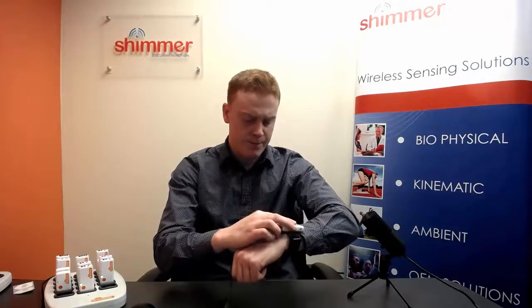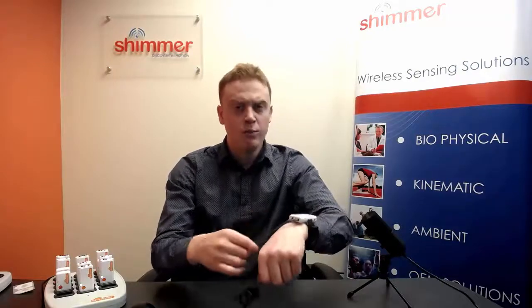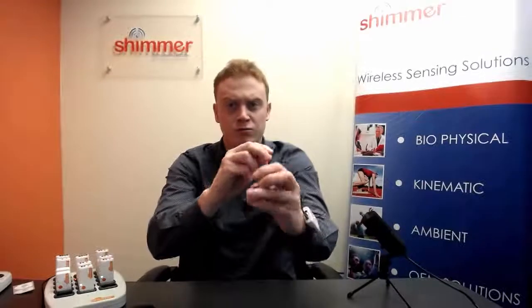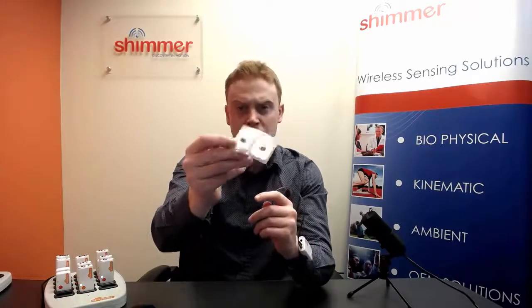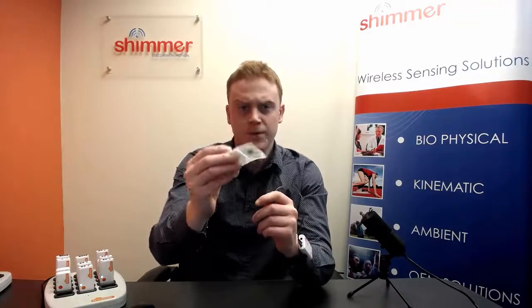With our system, the unit is typically placed on the wrist with biophysical leads connecting the unit to the two GSR electrodes. GSR dry electrodes come standard with our kits, but compatible gel electrodes such as these can be purchased separately on our website.